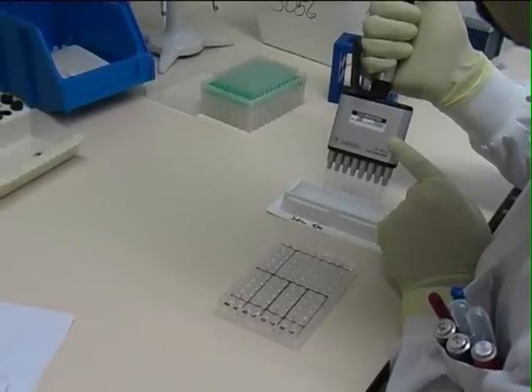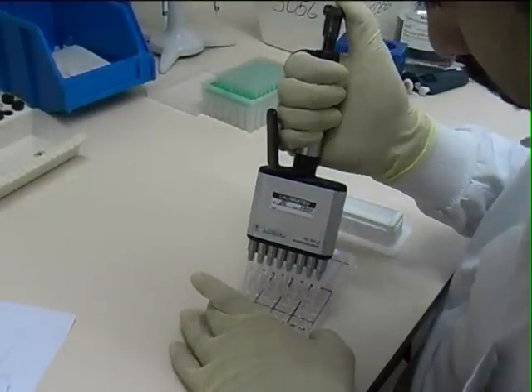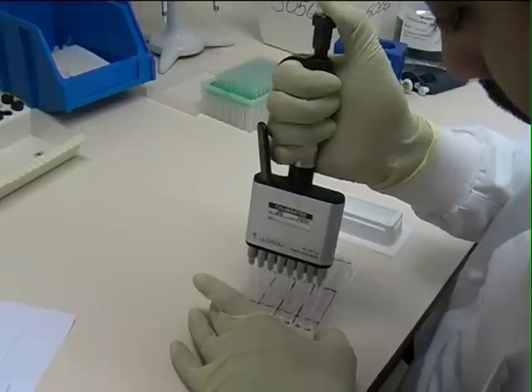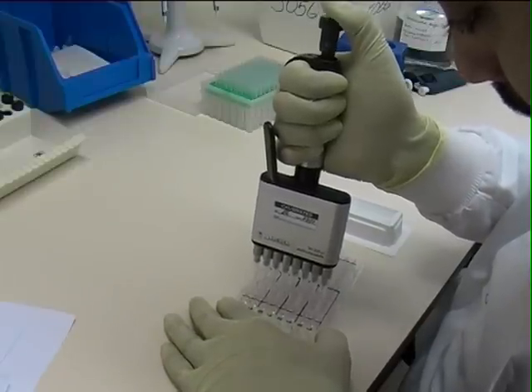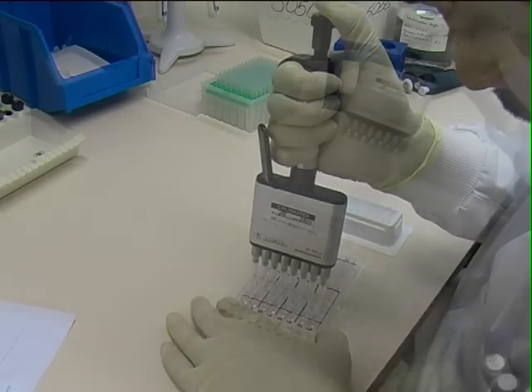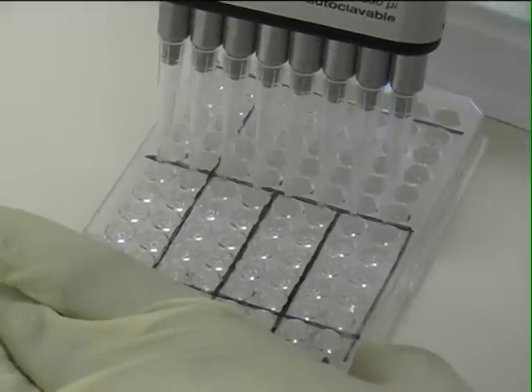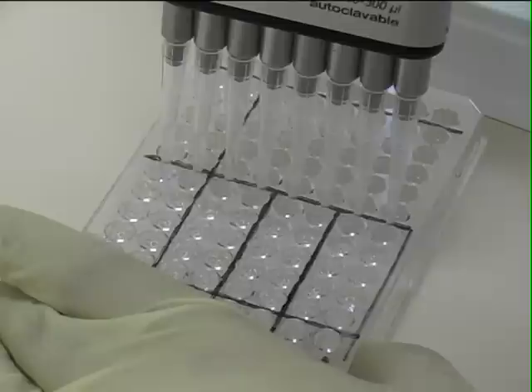Going back to the assay. After half an hour's incubation, the platelets are washed three times and then solubilized by adding solubilization buffer. After careful mixing, the plate is incubated for 15 minutes at room temperature. It is important to ensure that the platelets are mixed well with the solubilization buffer at this stage.